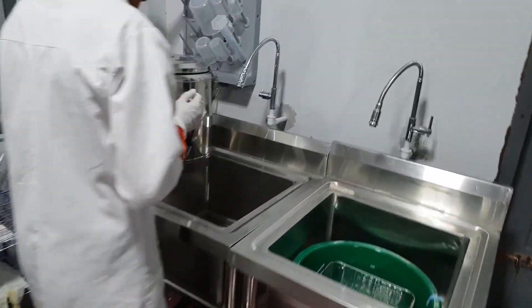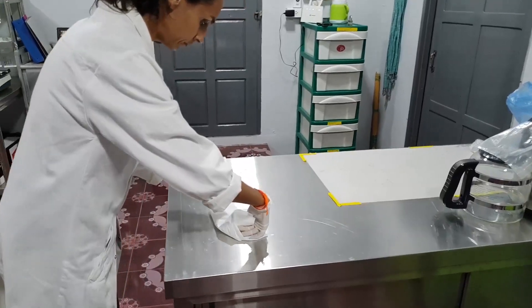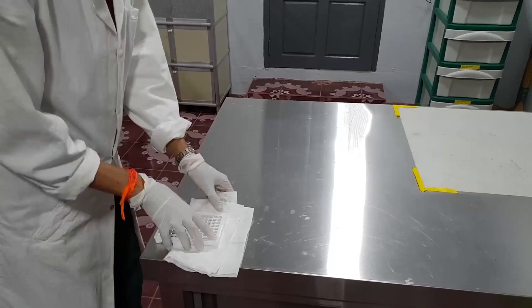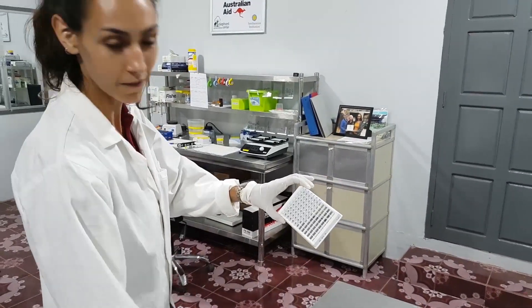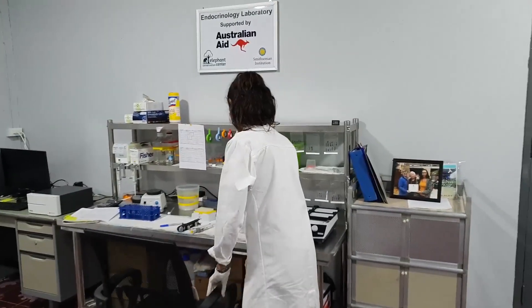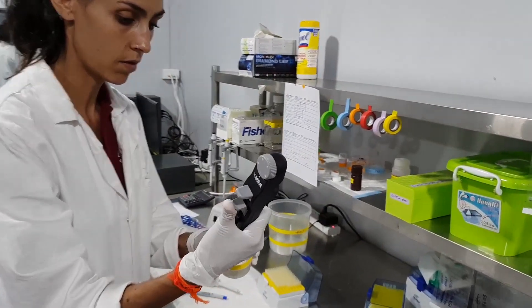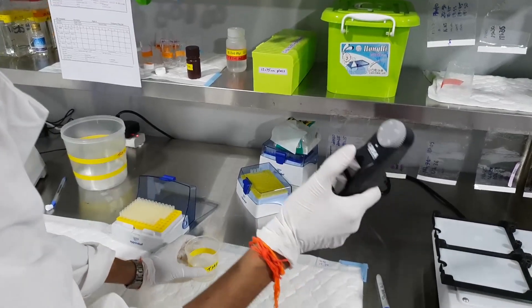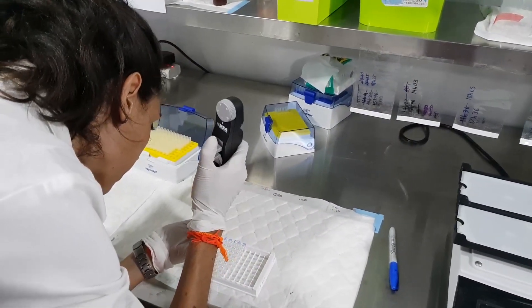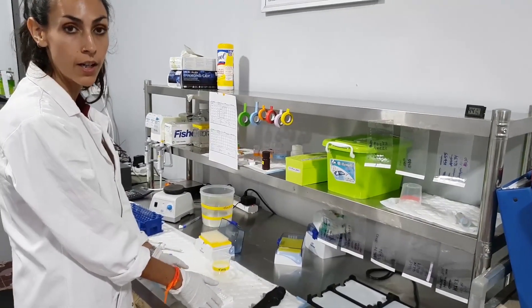So now we're going to wash the plate. I need to wash the plate five times. So our plate is dry and we are ready to put the substrate. So now we're going to put the substrate, which will react with the label that we put on the progesterone. It will give us a blue color. We just need to wait half an hour for the color to develop, and then we will come back and measure the results.